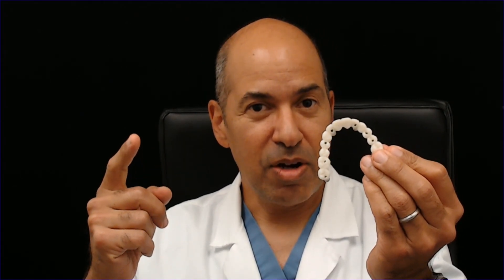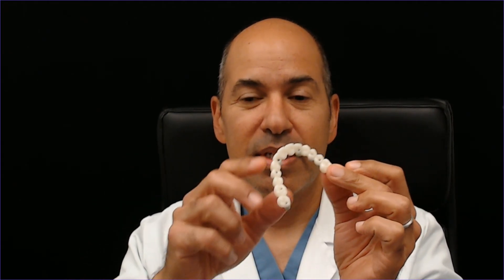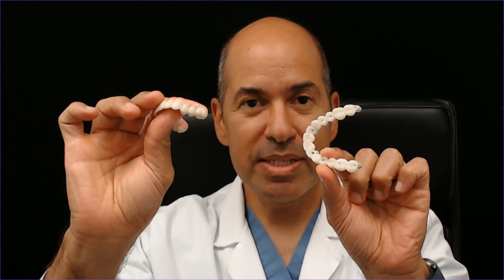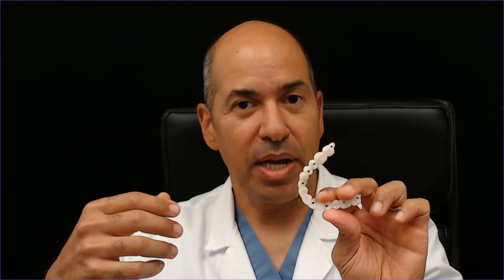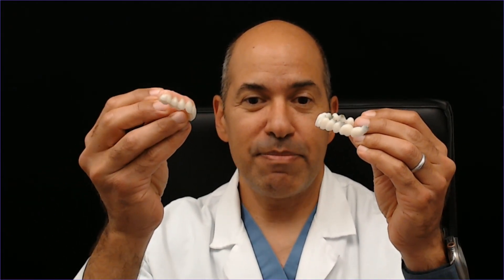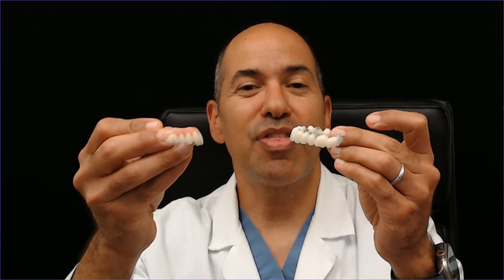The big downside of FP1 bridges is they're more costly. They're definitely harder to do and require a lot more skill from the dentist. They require numerous visits, more temporaries and prototypes. Your existing teeth pretty much have to be in a good place relative to where the new teeth are going to be. If you have a very challenging bite or teeth in the wrong locations, this often doesn't work. These are also much weaker than the FP3 bridges that have pink, because they're not as sturdy and they're much thinner in general.